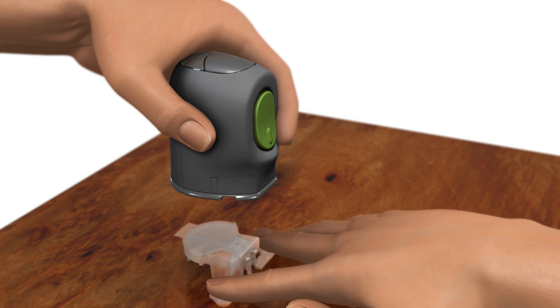After the pedestal is detached, the sensor remains inside the Sertor. This step also removes the paper backing from the sensor.